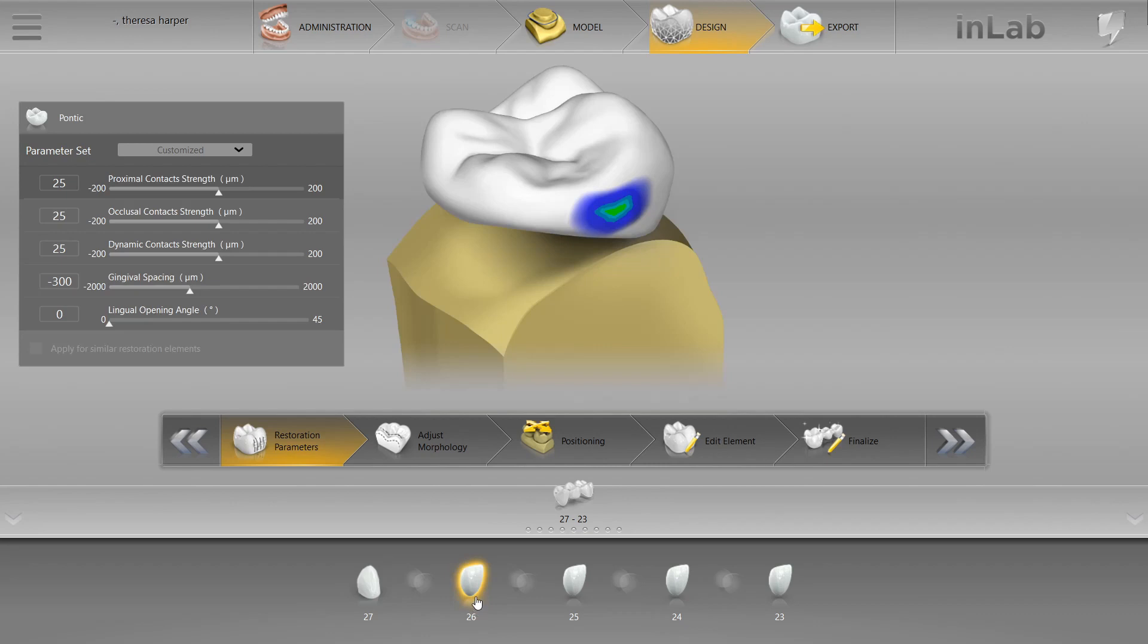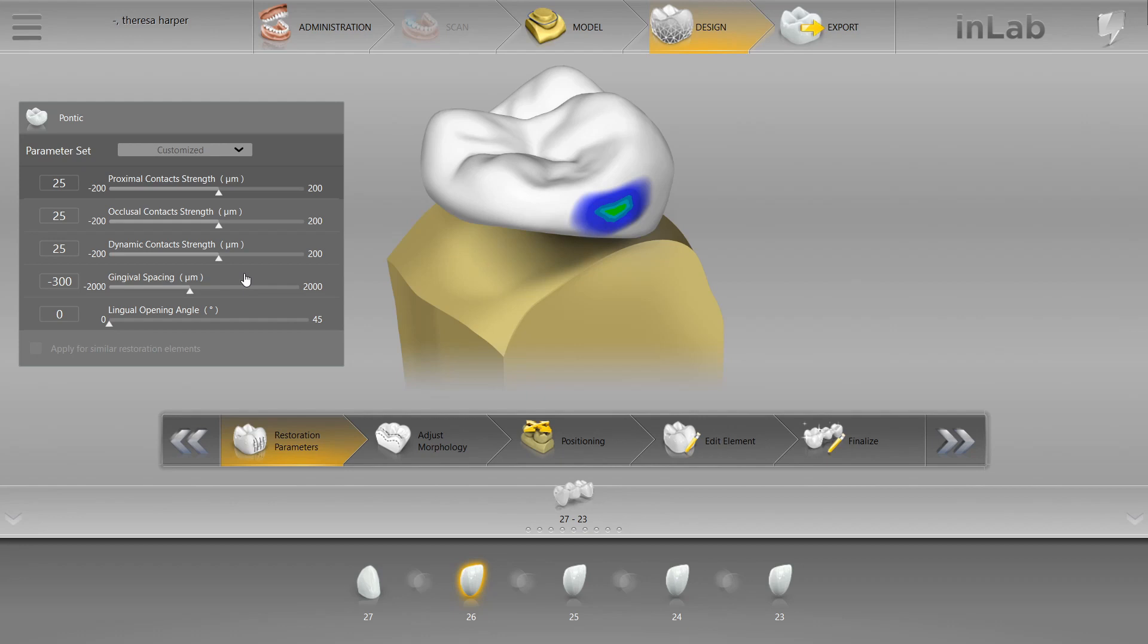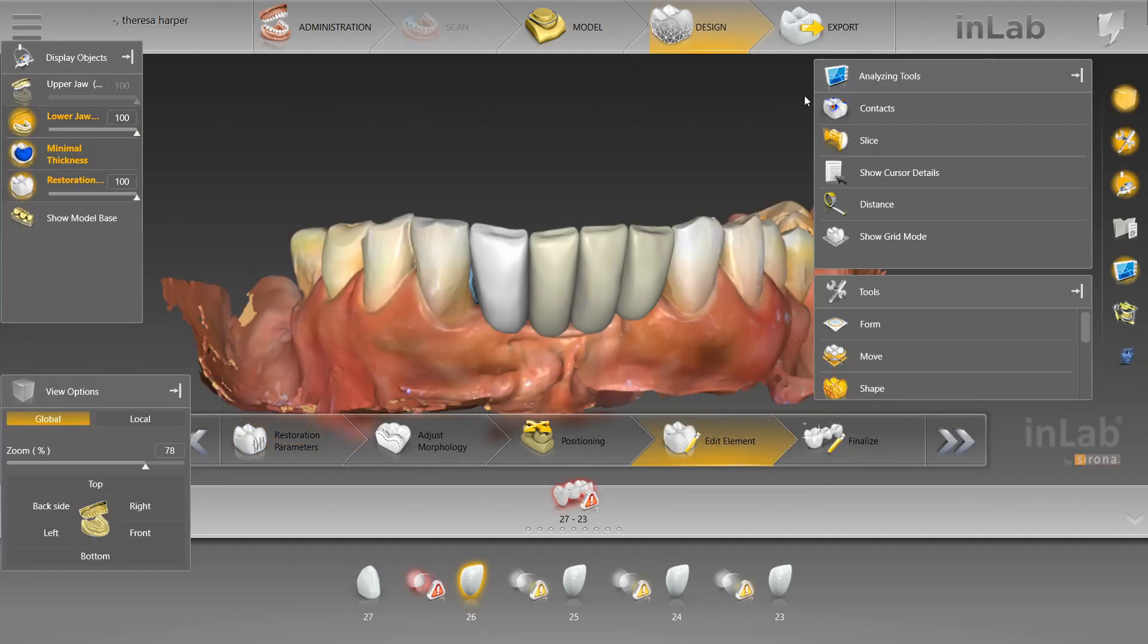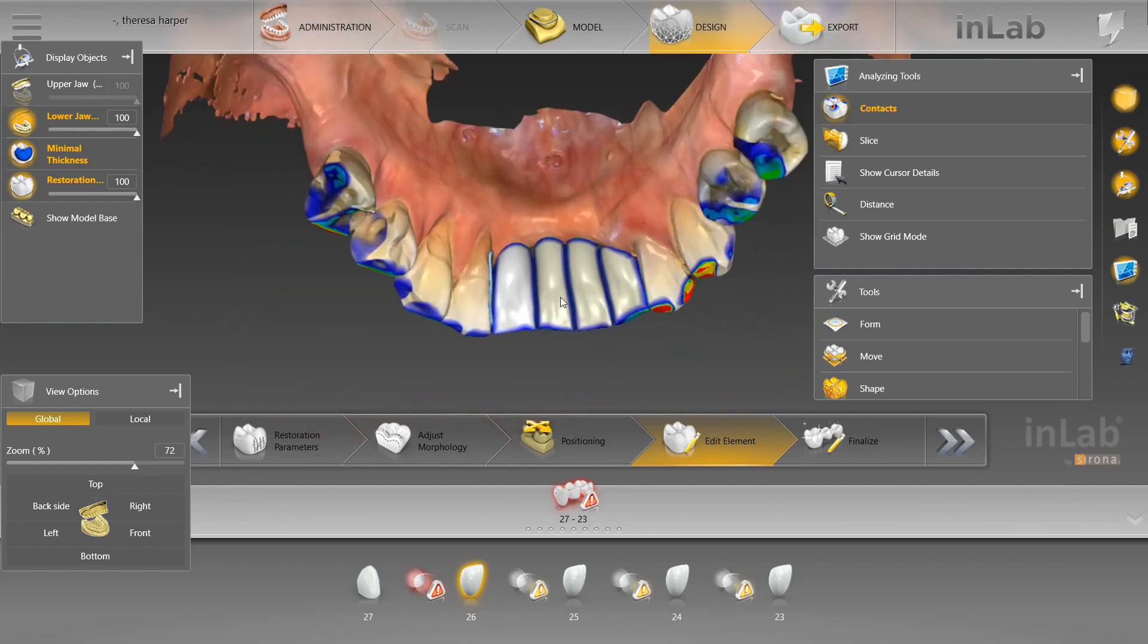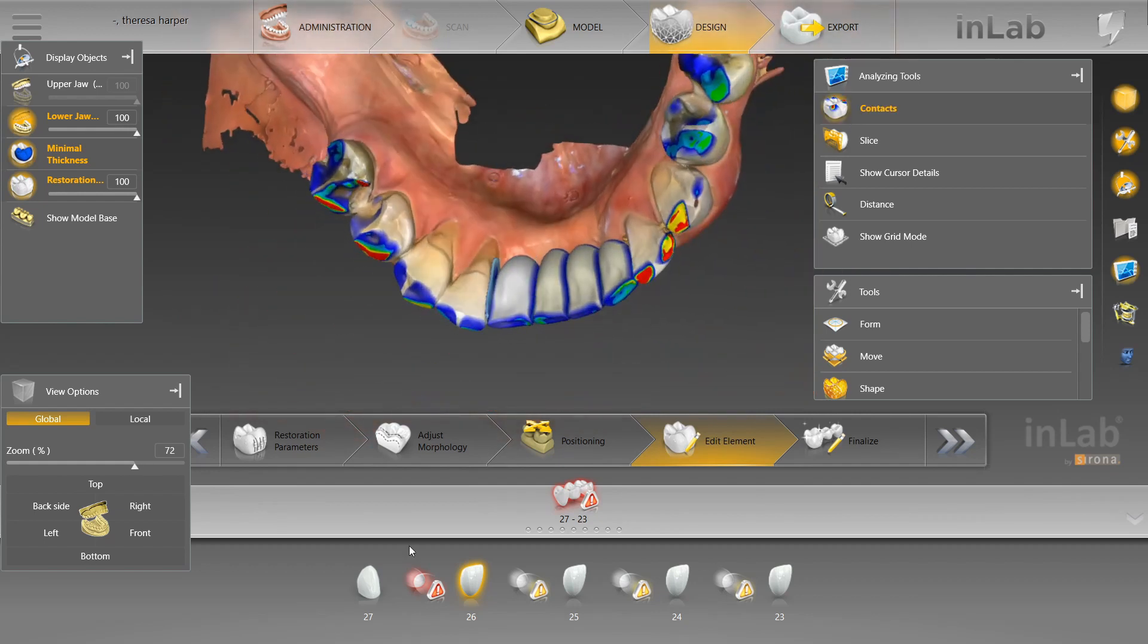But you've indicated the wax-up as a bridge. After you've virtually prepped or replaced the teeth, you've indicated the restoration or the wax-up as a bridge. And there's quite the workaround if you want to design the case or the wax-up as a bridge. I designed them as crowns, it's more seamless, and I'll show you guys why. So say you've got your case done, your bridge is done, you're happy with it, you've set the world on fire. It looks beautiful.